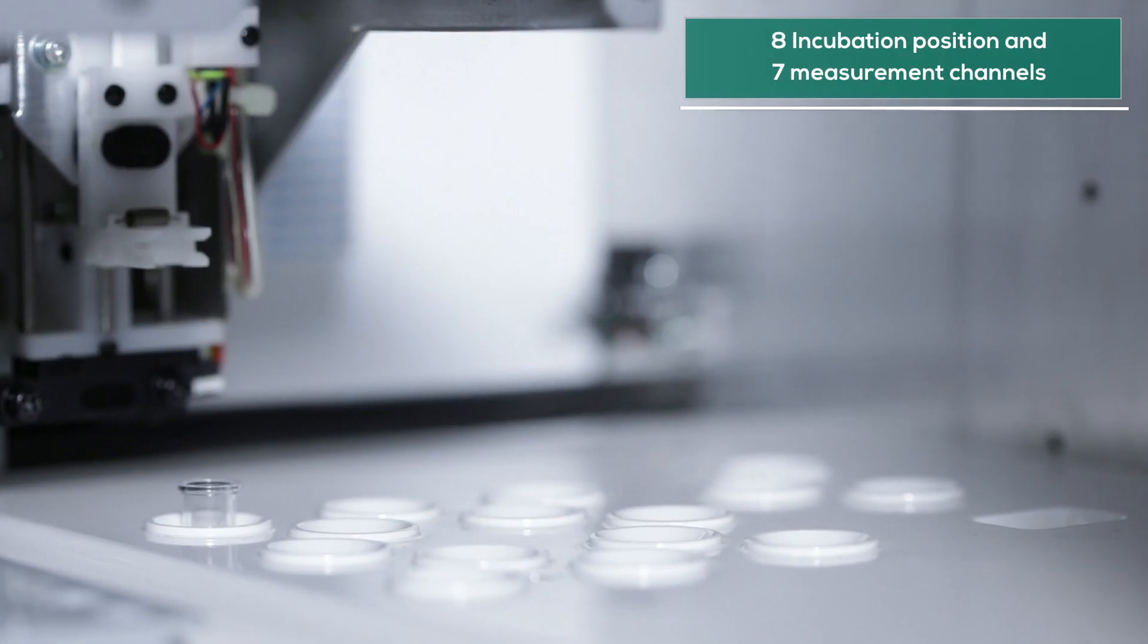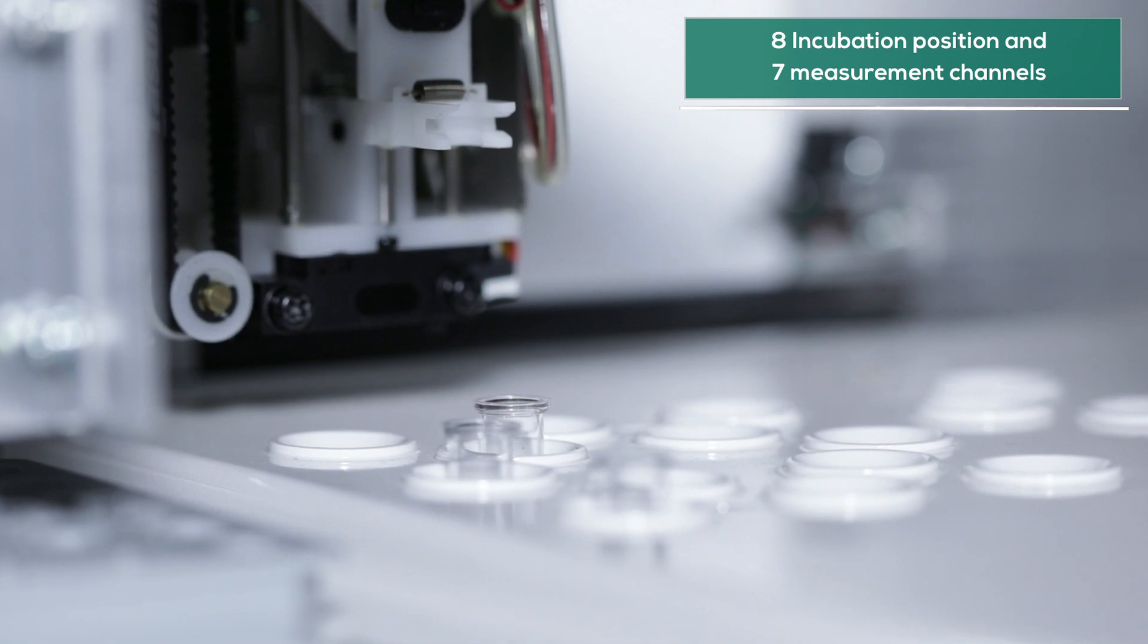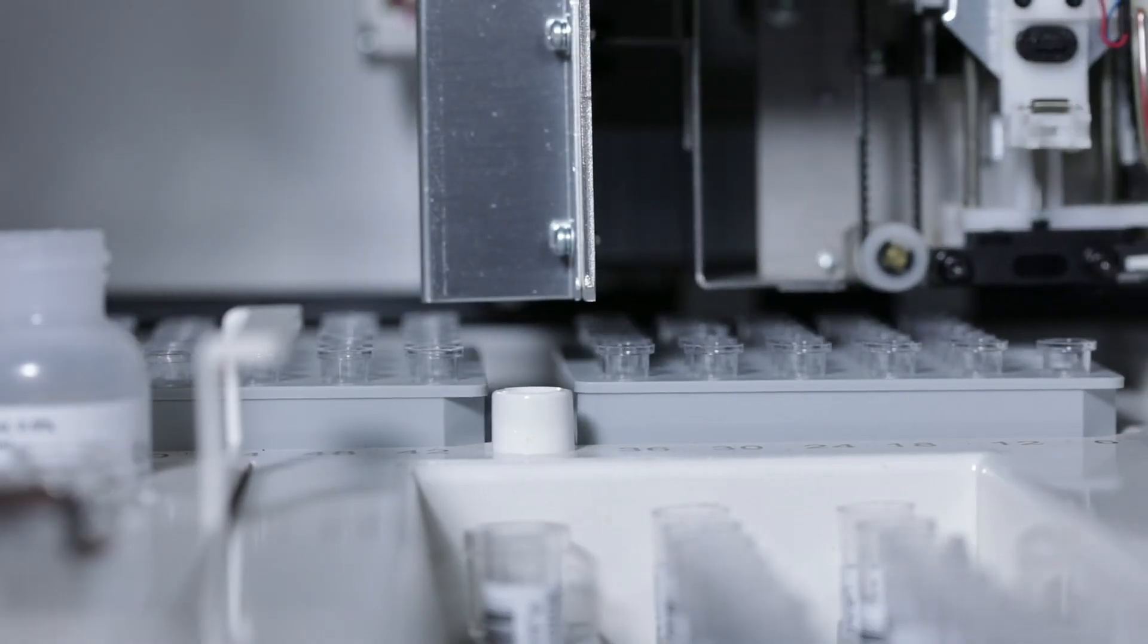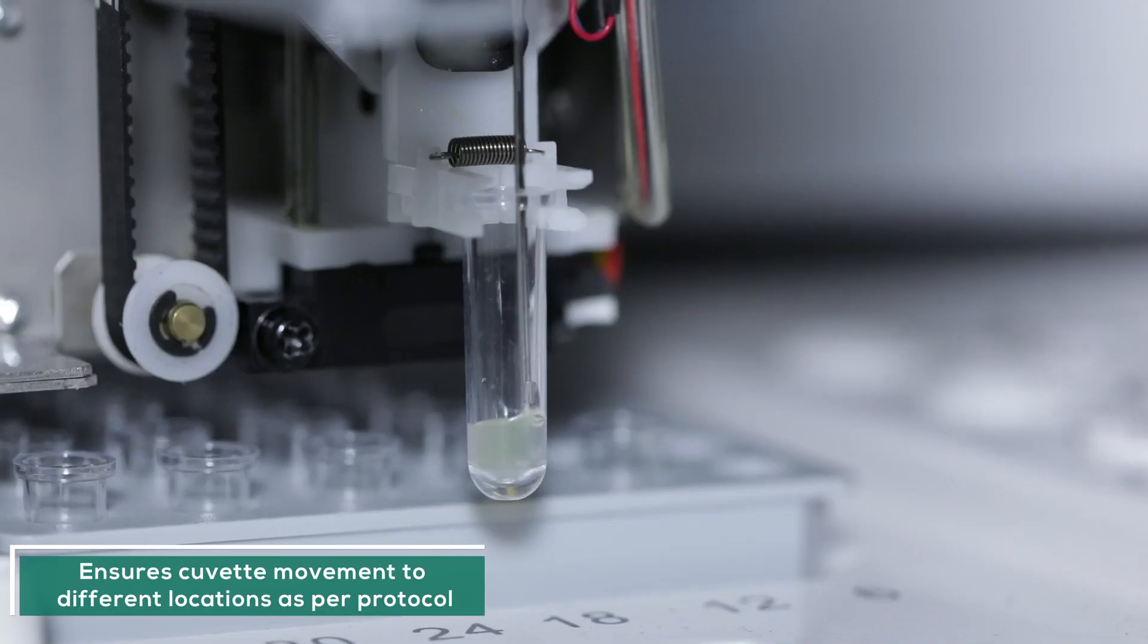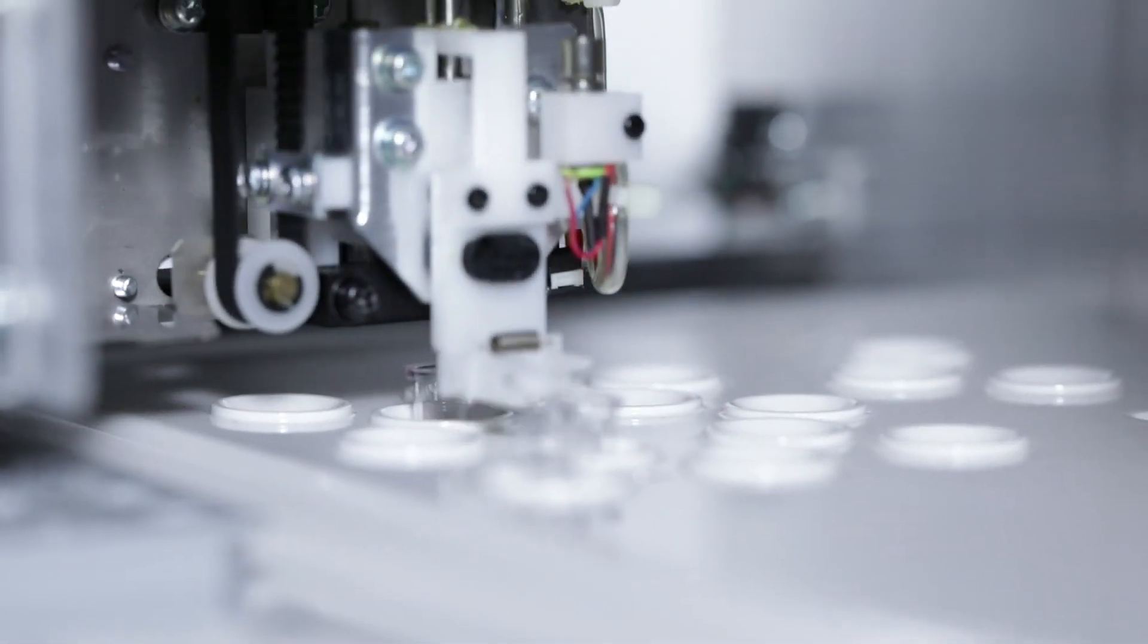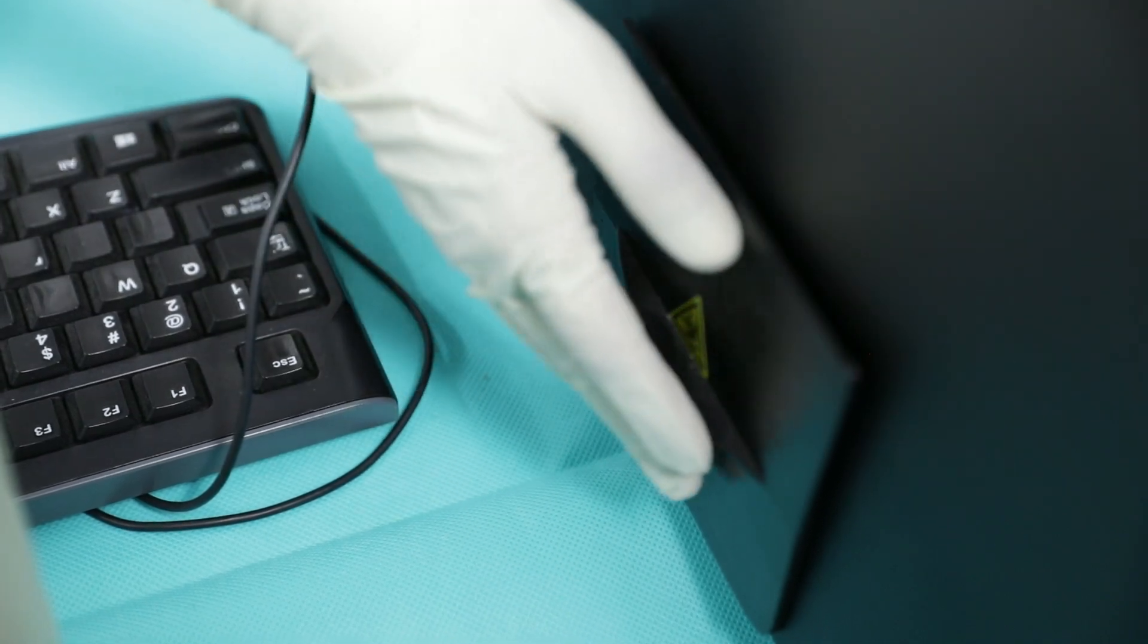With eight incubation positions and seven measurement channels, ECL760 also maintains seamless workflow. Enabled with mixing capability, Catcher ensures cuvette movement to different locations such as sampling, incubation, pipetting, reaction, and waste bin.